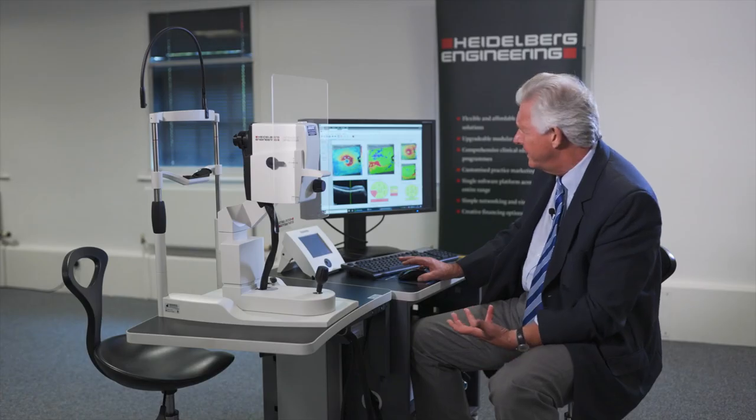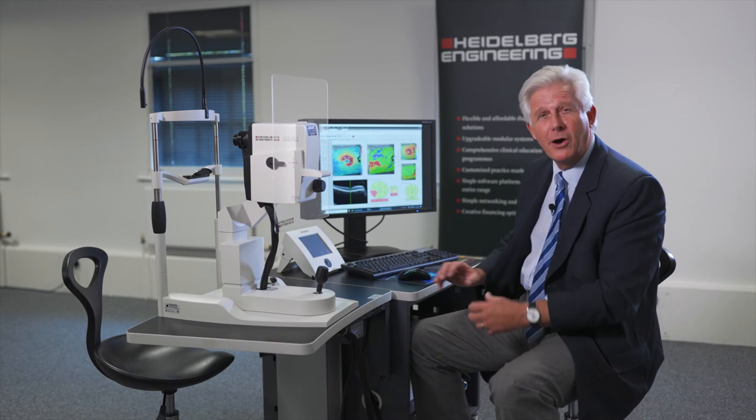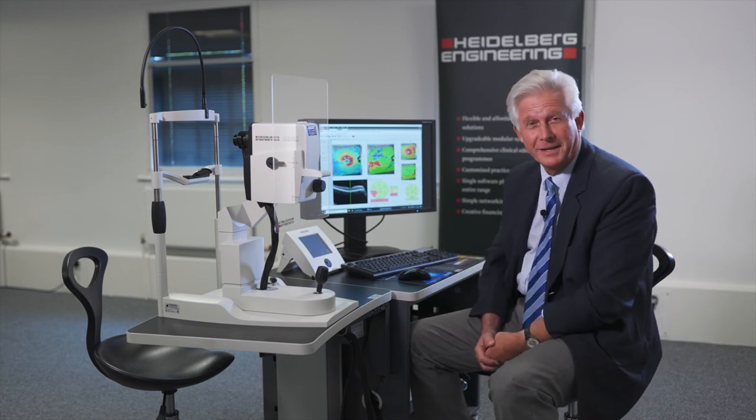So we really have a view of the whole picture. We take a holistic approach and don't look at just one parameter. We look from the neuroretinal rim to the nerve fibre layer to the posterior pole to the ganglion cell layer, and we have much more confidence in our evaluation of that eye from a glaucoma perspective, and may even be able to identify patterns of non-glaucomatous optic neuropathy as well.